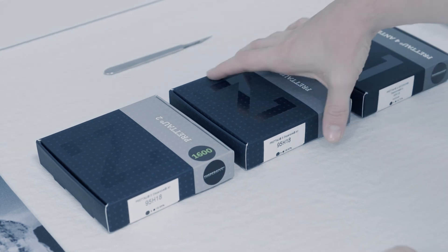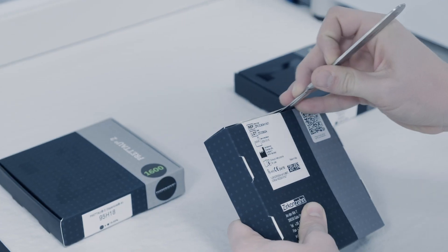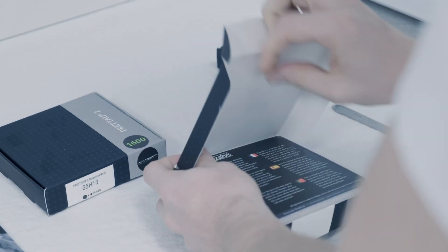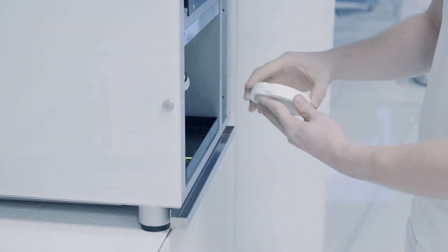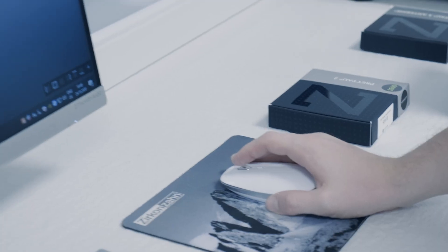If the material of the shade guide and the material of the zirconia crown are identical, the color of the zirconia restoration will surely correspond one to one with the natural tooth color of the patient.